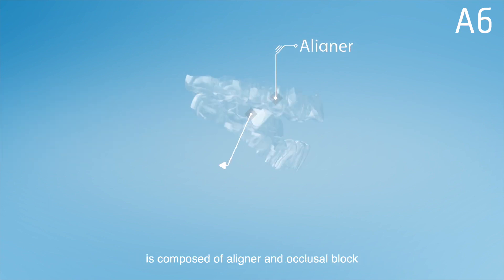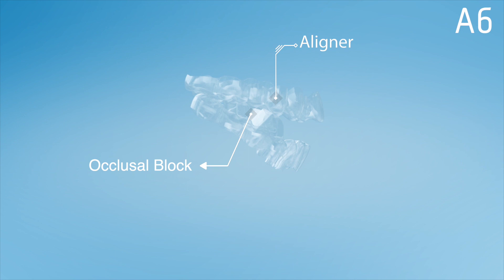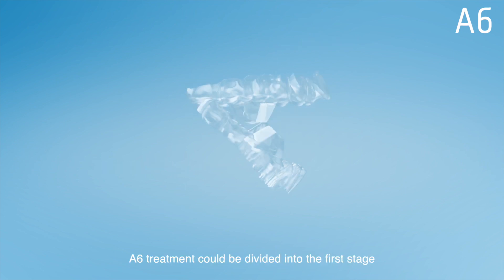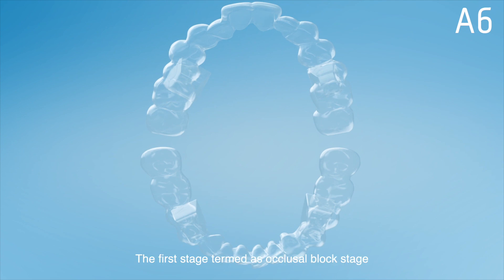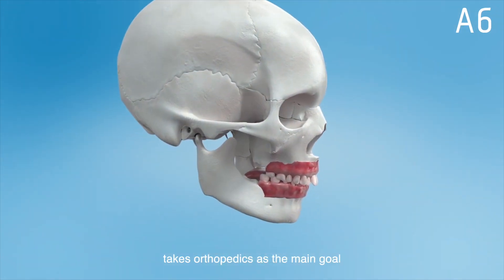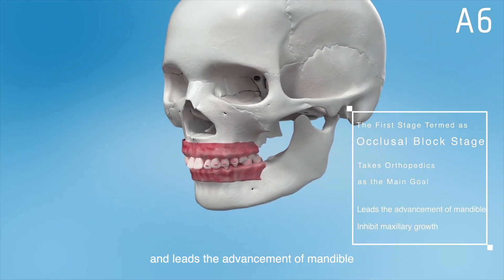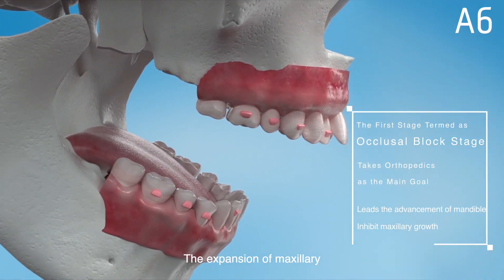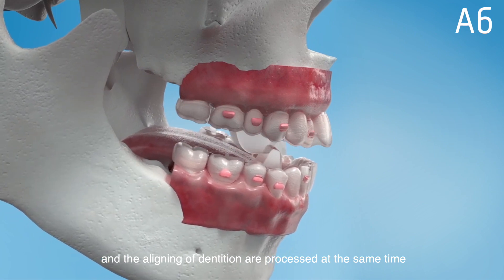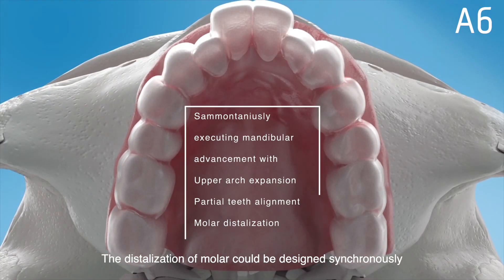The A6 mandibular advancement solution is composed of an aligner and an occlusal block. A6 treatment is divided into a first stage and a second stage. The first stage, termed the occlusal block stage, takes orthopedics as the main goal, while advancement of the mandible, expansion of the maxillary, and aligning of the dentition are processed simultaneously.